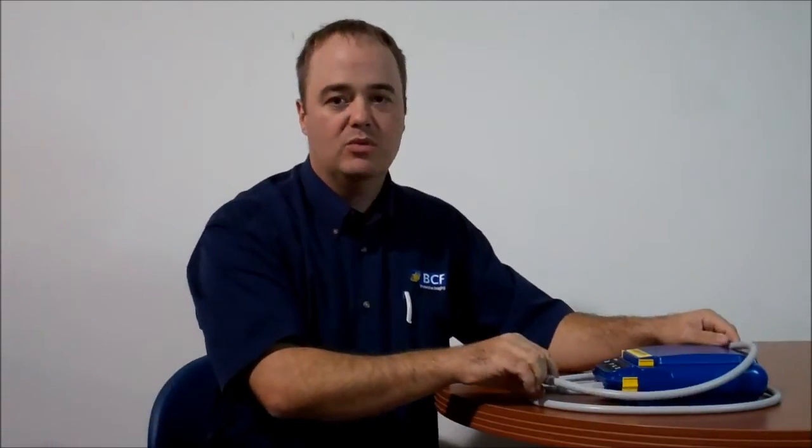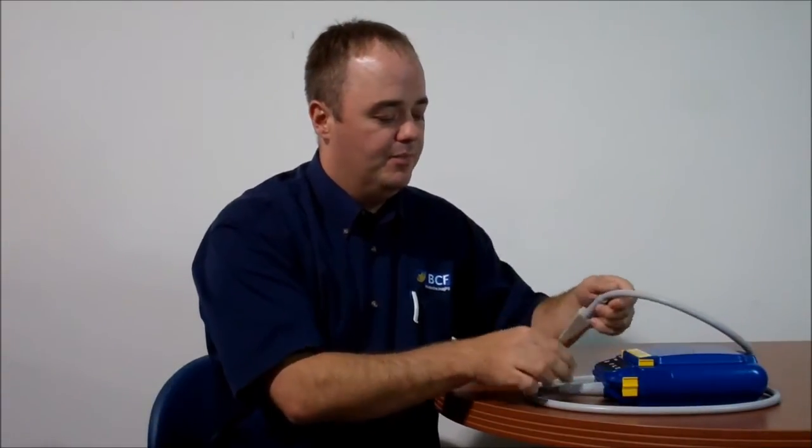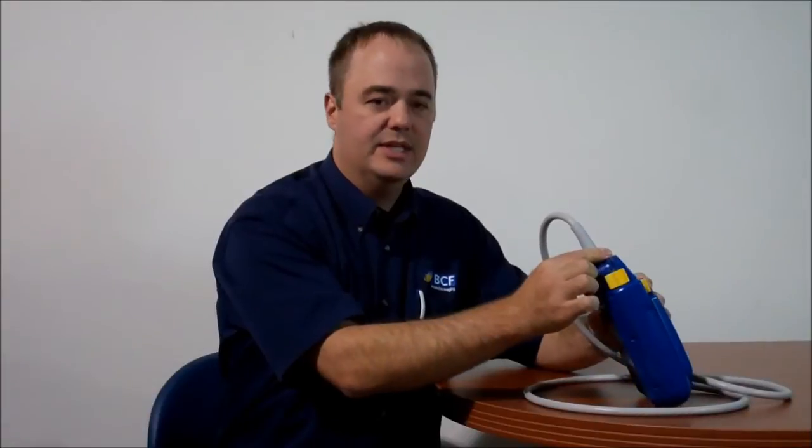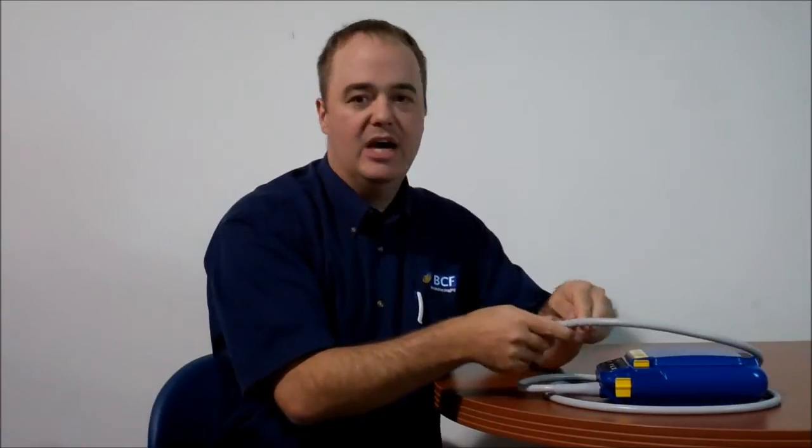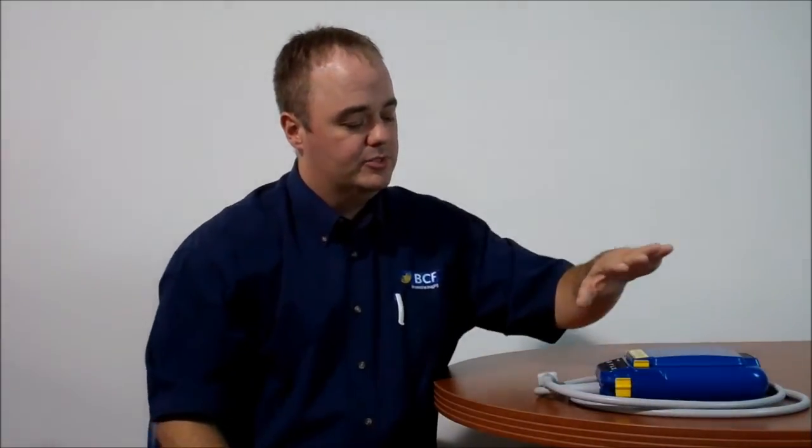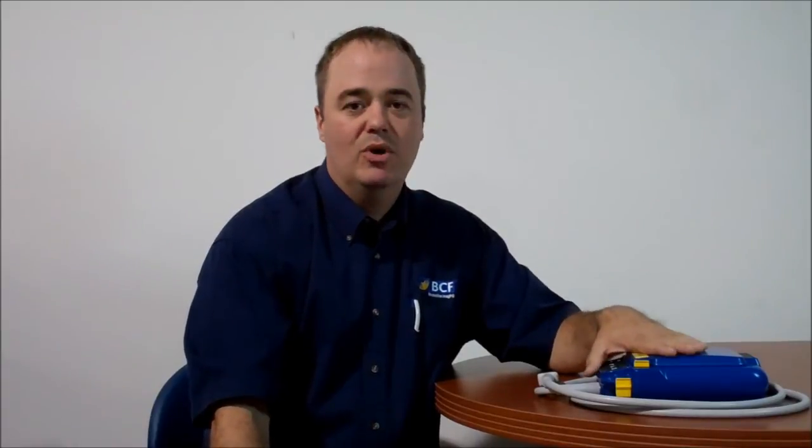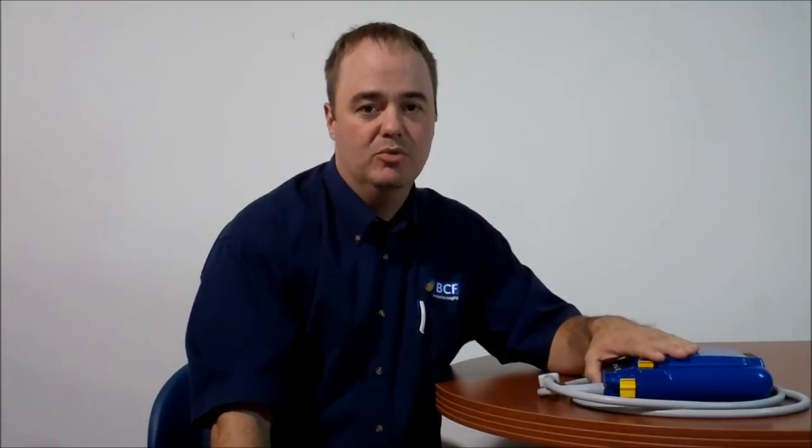Our probe is completely direct wired, completely fixed, completely sealed. We have found with other probes, usually the downfall of most probes is in the connector itself. So with our probe, you don't have to worry about any bent pins, getting any water, moisture or corrosion in the probe connector.